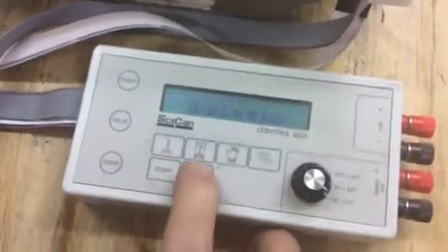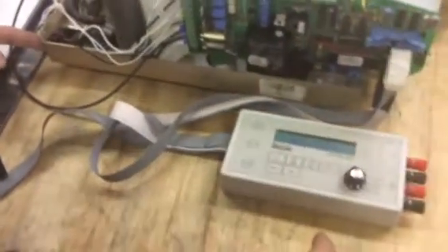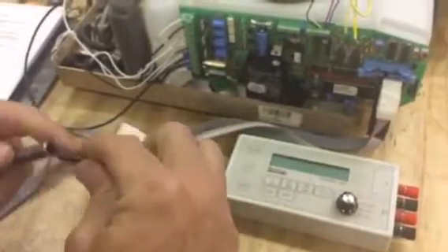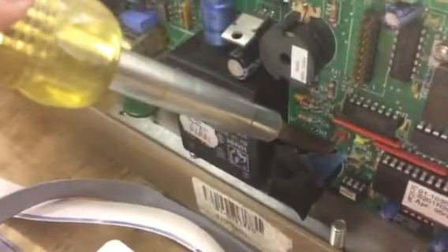What we're going to do here is hit the stop button, then go to the back and turn the power off. With the power off, take a flathead screwdriver and go down to this W1 pin right here. Take the screwdriver and connect both leads on the pin, then turn the power on.